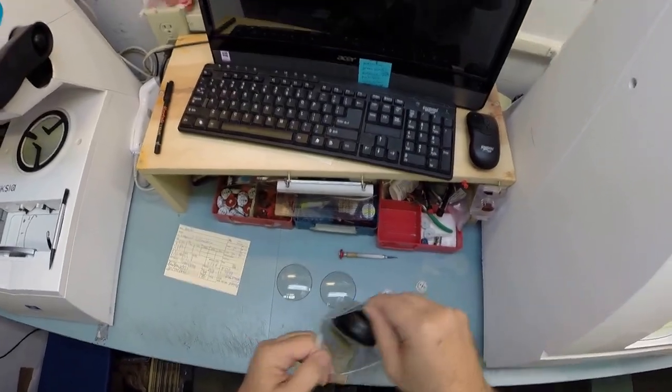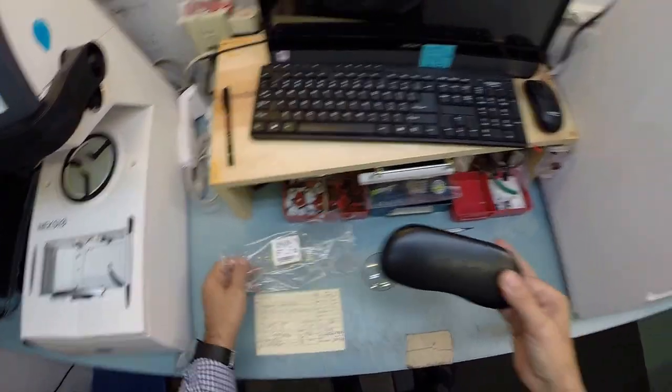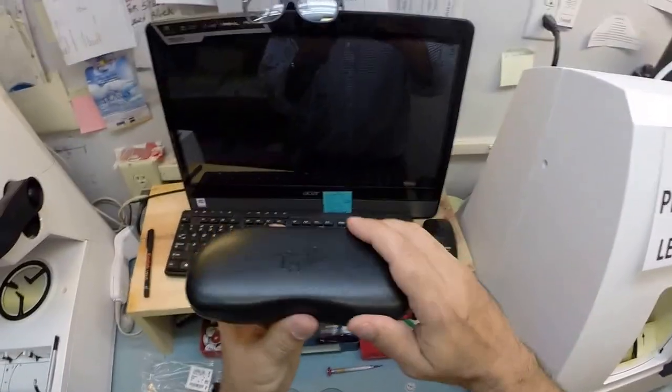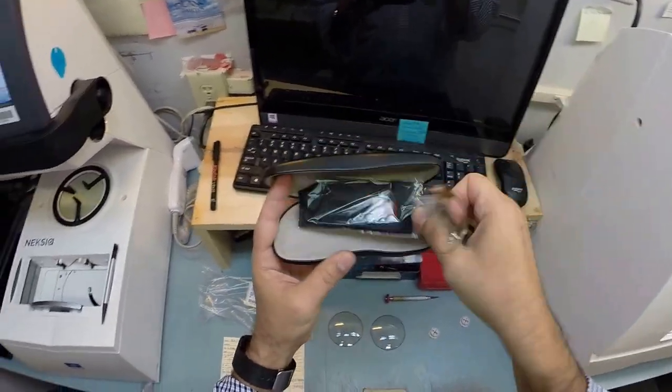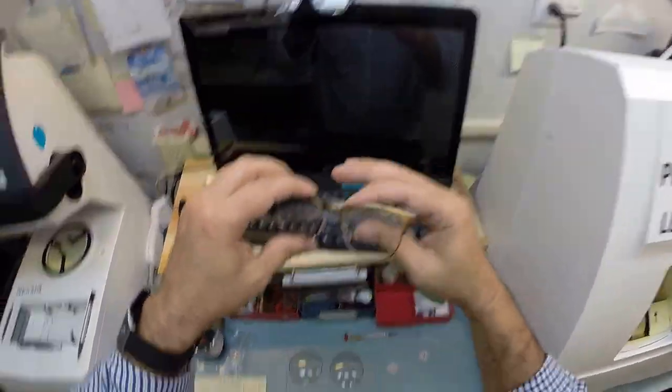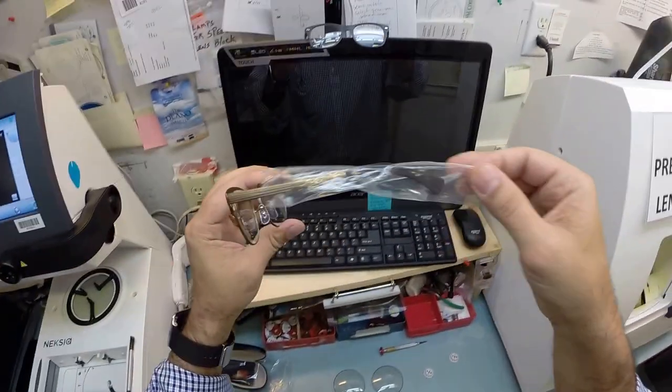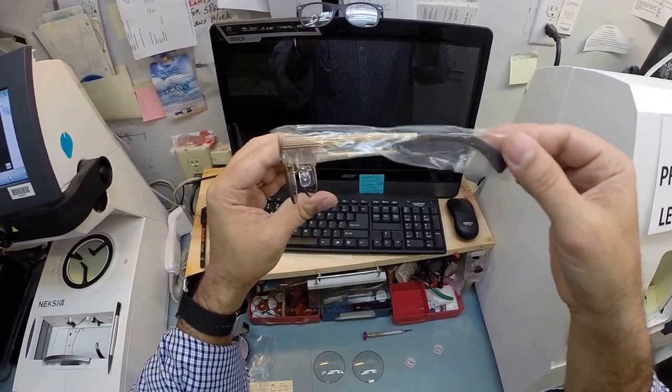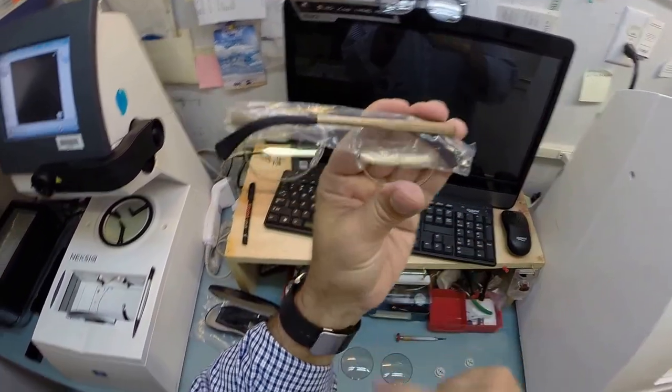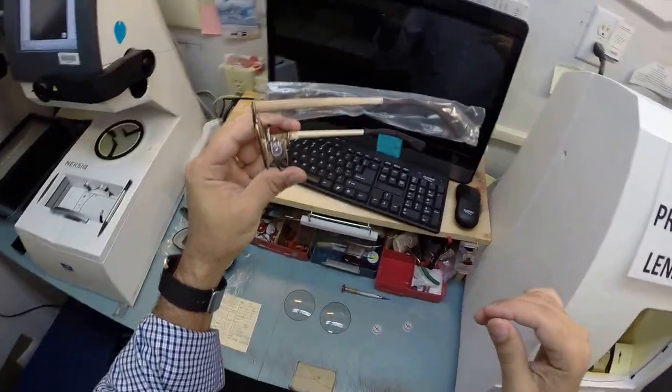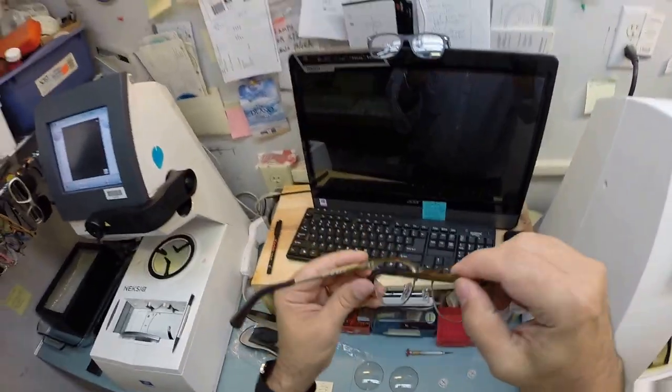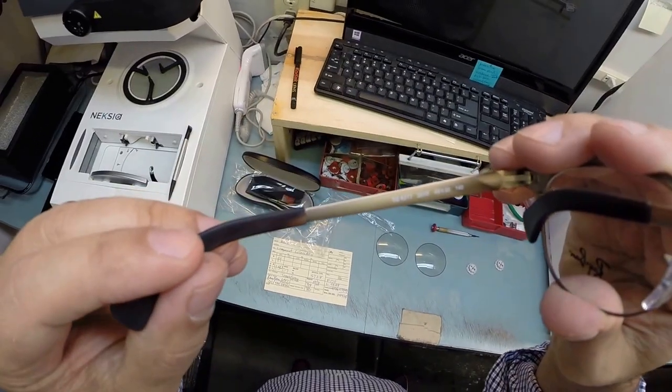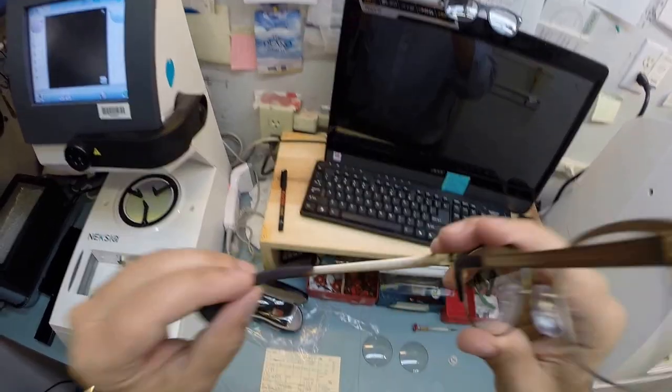Let me take everything out of the original packaging that Ray-Ban sends it to me in. Of course your hard Ray-Ban case, your Ray-Ban cleaning cloth, and the star of the show, the main attraction, the Ray-Ban 6317. It comes with a little plastic sleeve on the left temple to protect the temples from rubbing together while it's being shipped from overseas and I'm gonna include that when I ship to you. This is the Ray-Ban 6317 color 2836 in the 49 eye size.